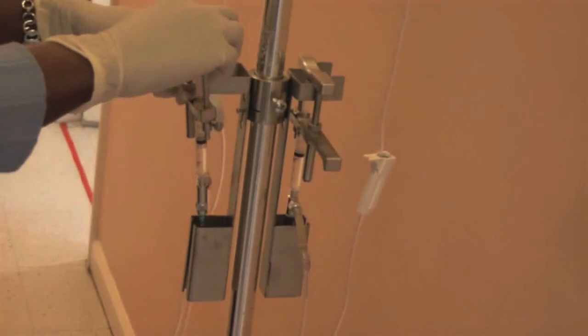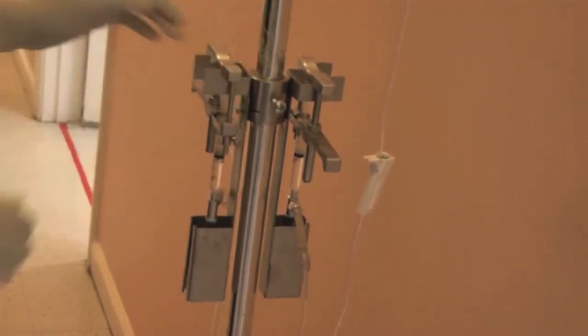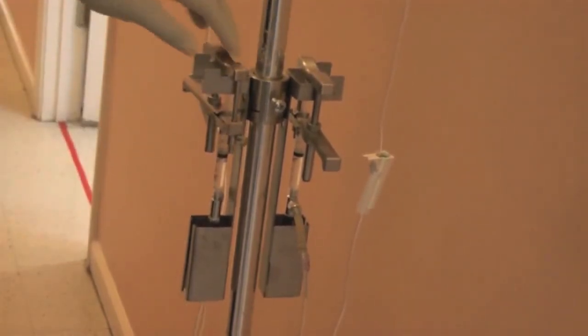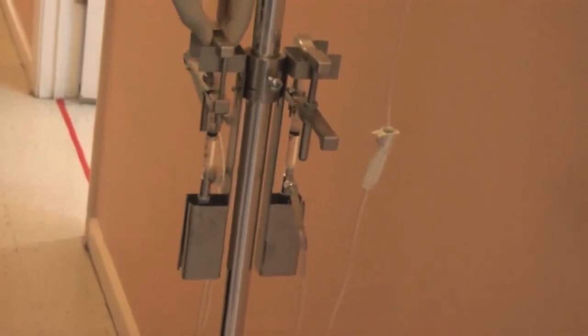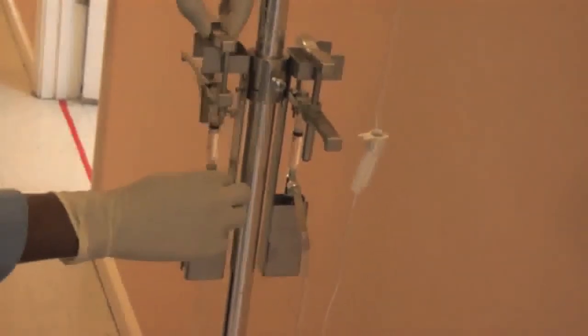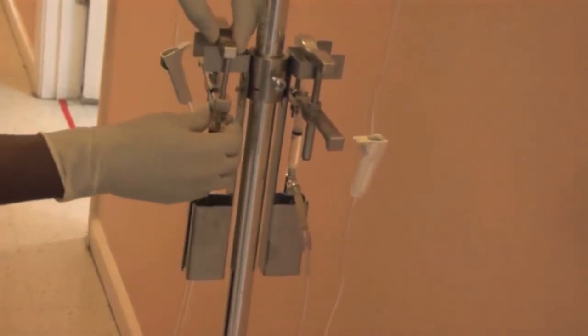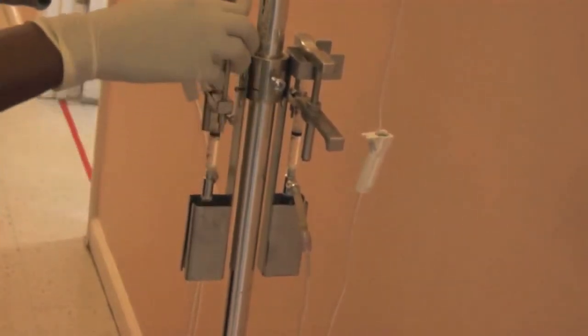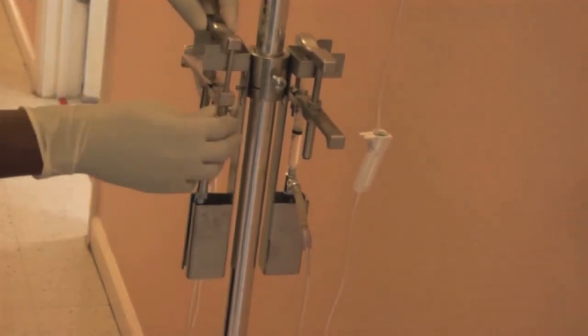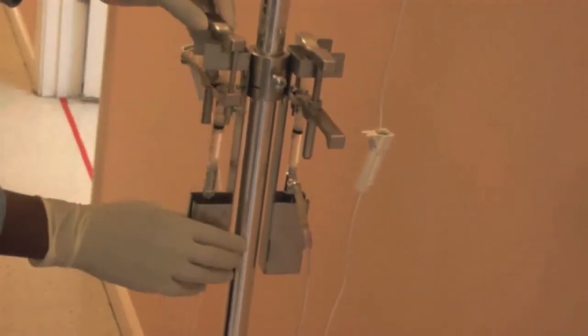Here the self-filling injection device is placed onto the holding stand which protects the staff from accidental needle injury. The stand is affixed to an IV pole which may be moved about the surgery room, and the IV fluids hang from the IV pole.